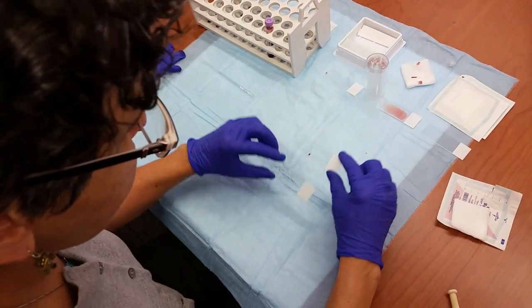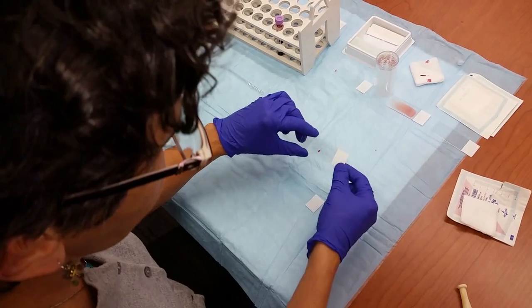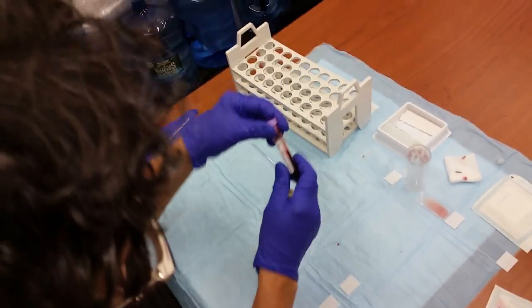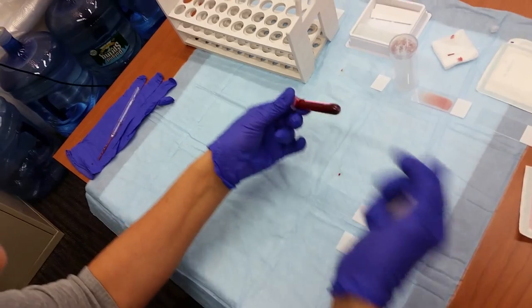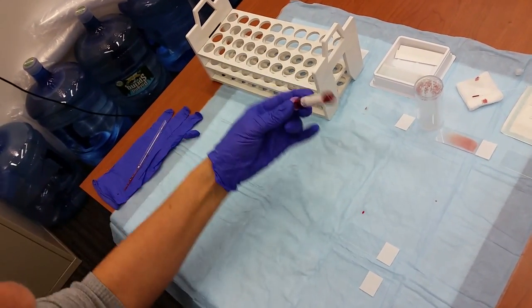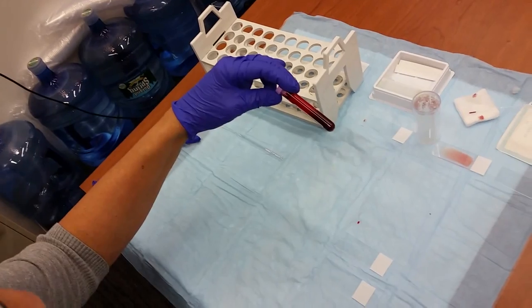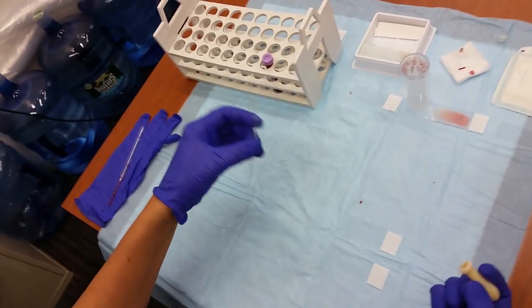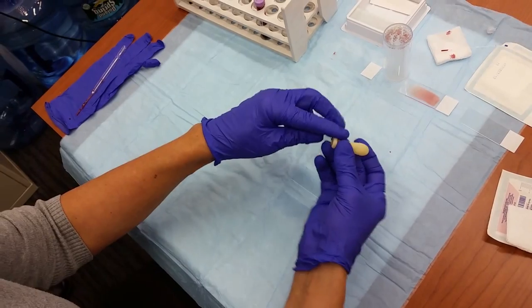The equipment we'll need are two clean glass slides, preferably frosted so you'll be able to label them, a specimen of anticoagulated blood. This is usually provided for blood counts in a lavender top tube which has EDTA. A Pasteur pipette with a bulb on the end of it.